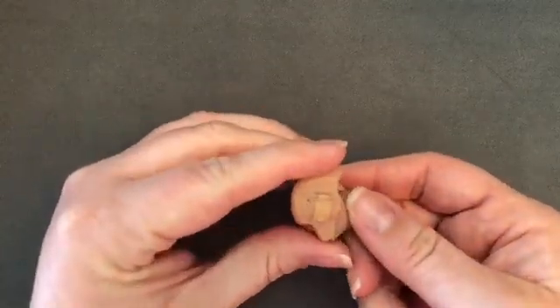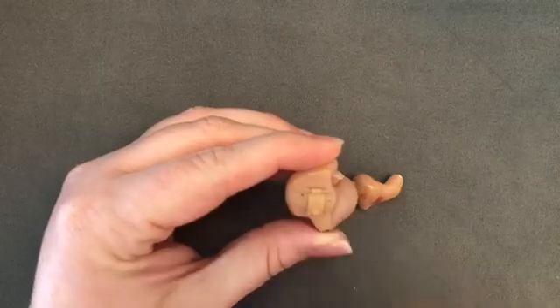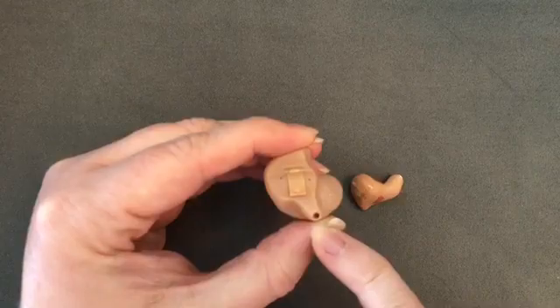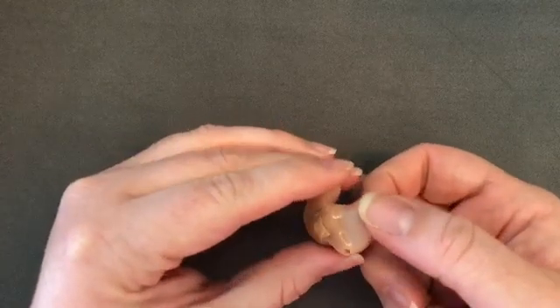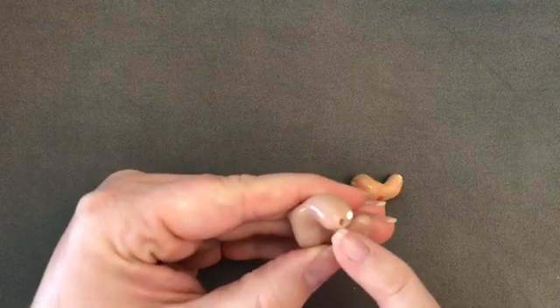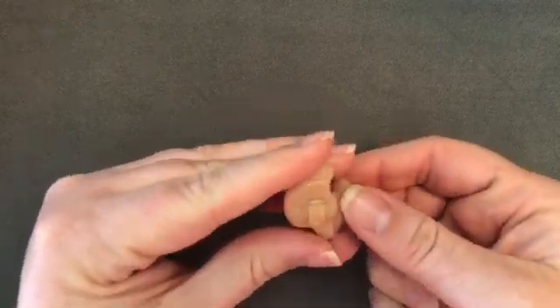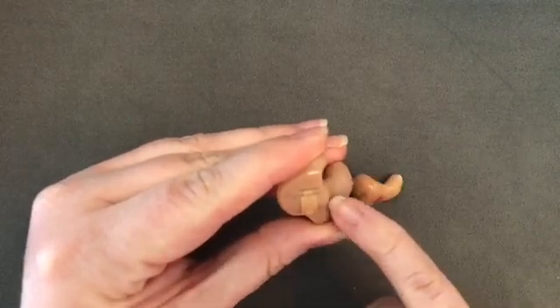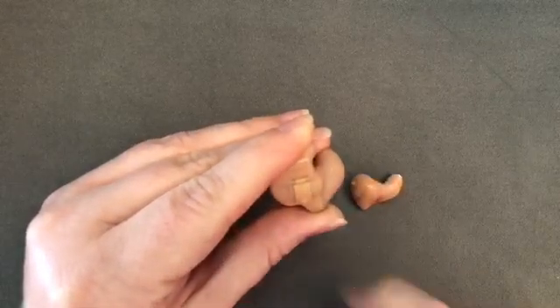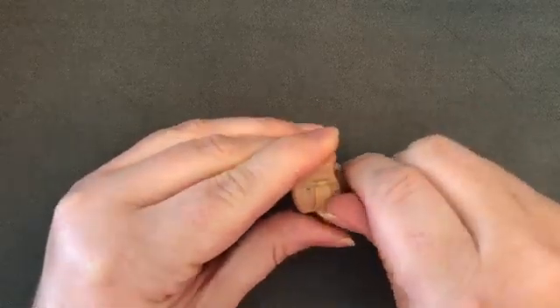This portion is called the faceplate of the hearing aid — this is what's facing the outside world when the device is in your ear. At the bottom again we see the other side of the air vent, which runs all the way through from the outside part of the faceplate through the canal portion and into the ear canal. Other things to note on the faceplate are the two microphone openings on either side of the battery door, and the battery door is right there in the center. There's a little notch on the end of the door that you can use to open it.